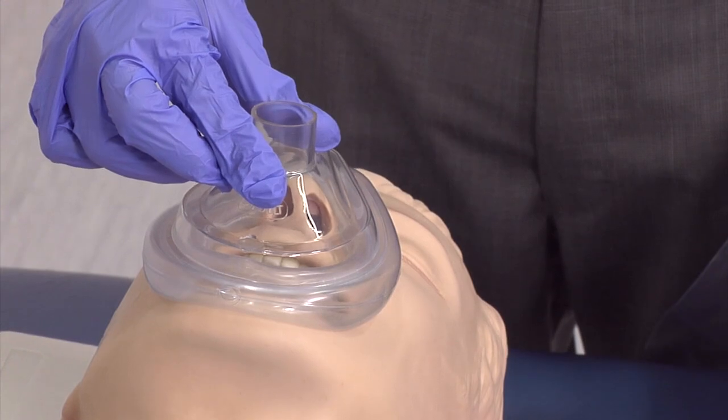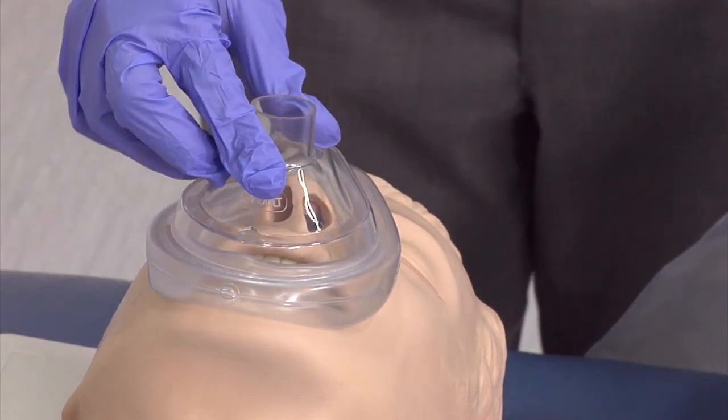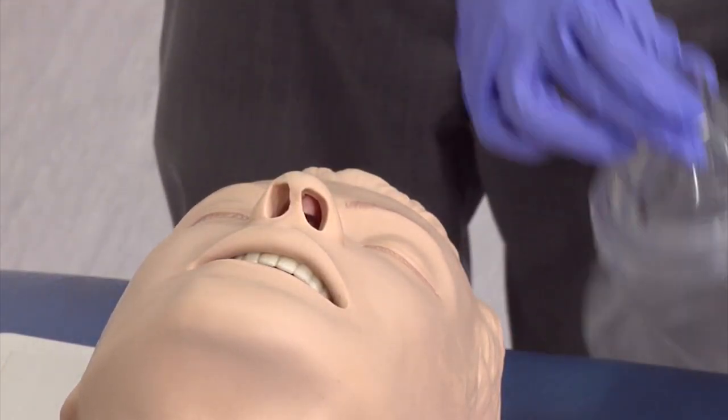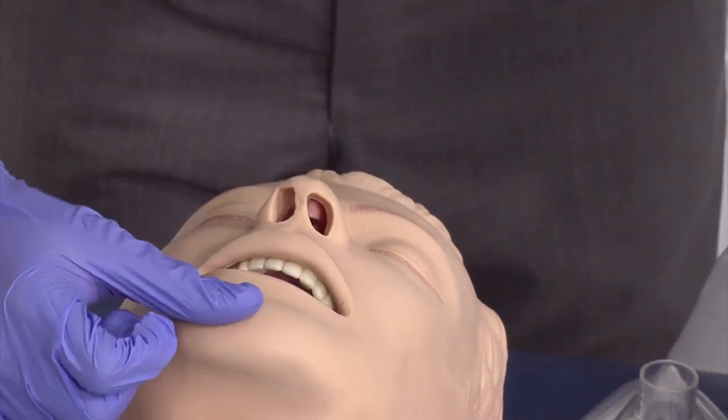Ventilation with the bag valve mask is only effective if there is a patent airway, so first check the airway and use adjuncts if necessary.